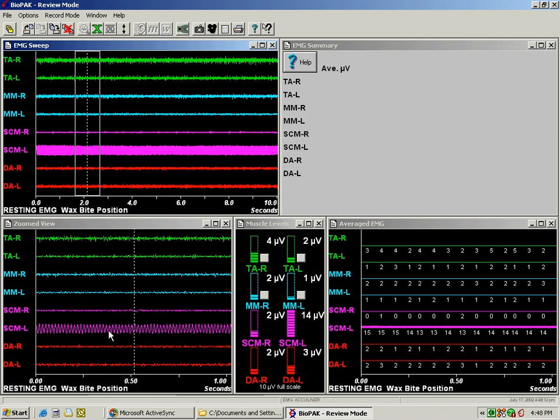So the spiking here is caused by background electrical noise as opposed to the more random firing or more random looking pattern of actual muscle activity. Now if you see this in your resting activity, you want to retake the trace during recording.